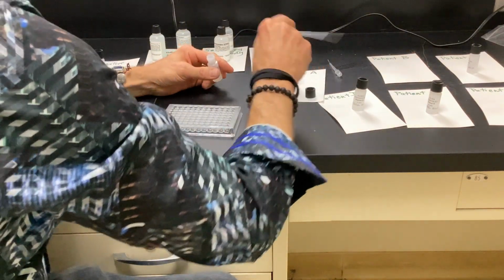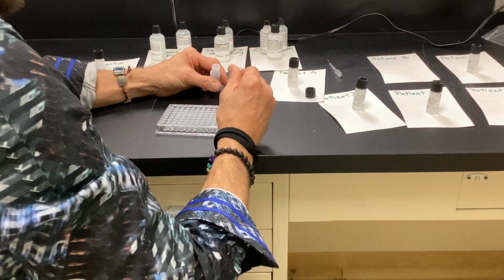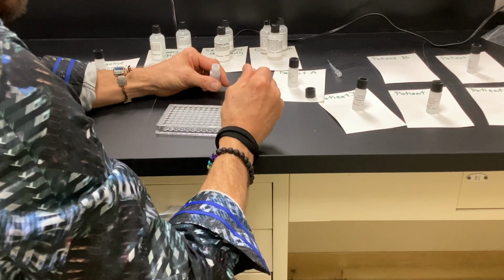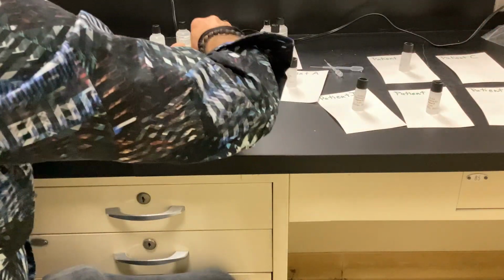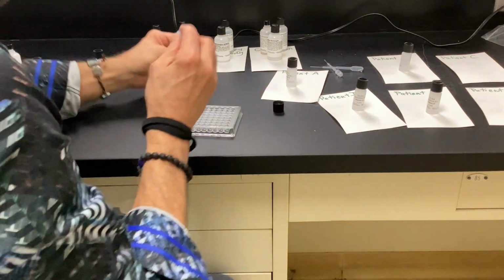All right, patient B goes into 10, 11, 12. Yeah, see how careful I am. All right, so this should be B1, 2, 3.